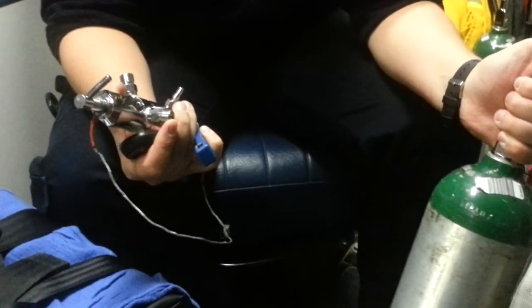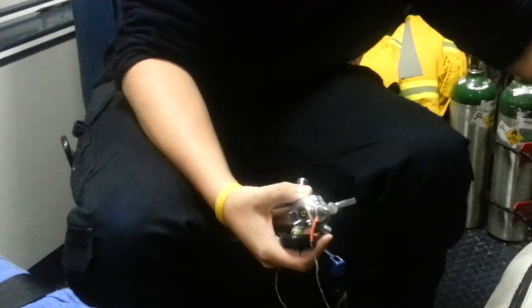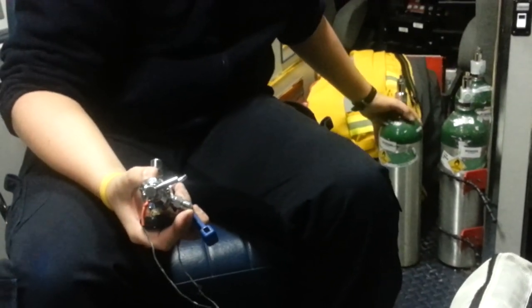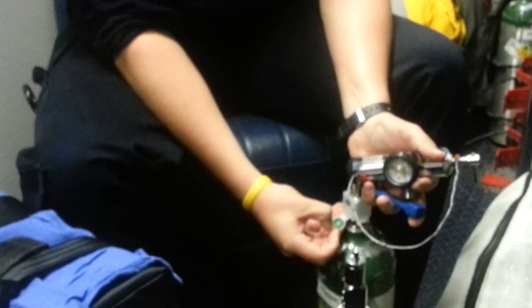This comes out and comes off. This is your empty O2 tank, and I'll show you where to put this later. Then we're going to take a full O2 tank — you can find two full ones here and here. When you have a full O2 tank, it's going to look like this, and it's going to have a plastic tab on it. When you pull it, there's going to be a green thing right here.